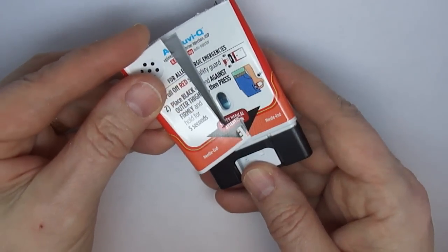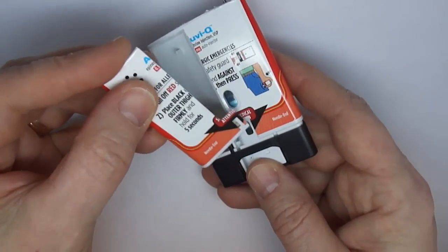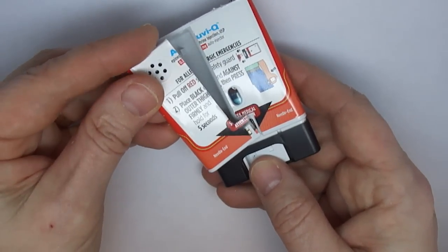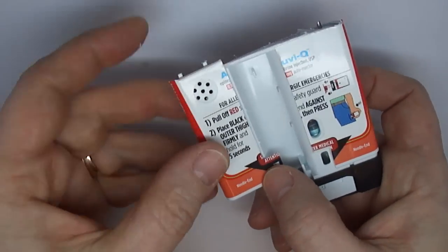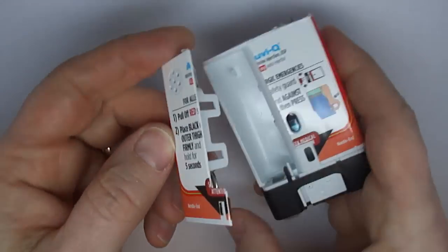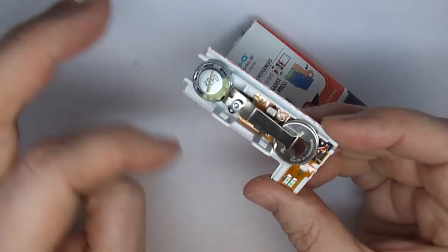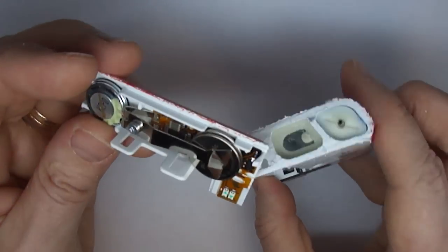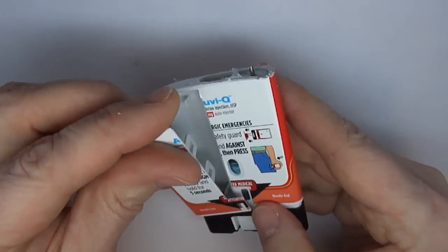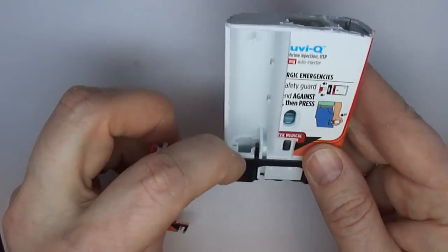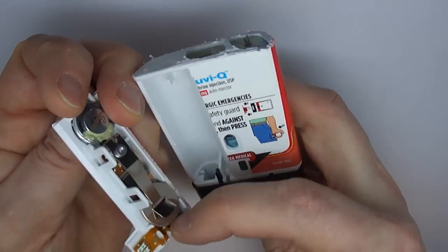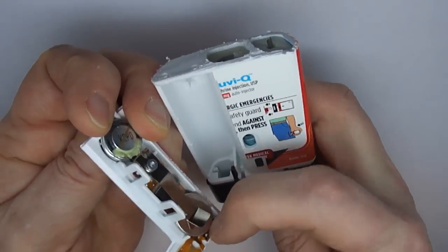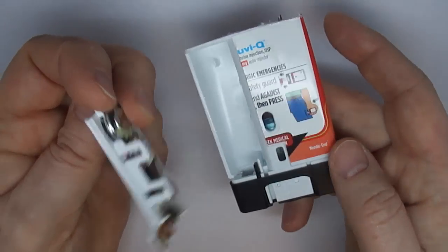And I think that there is a sensor here that can sense what kind of position the needle is in, whether or not the device has been used. Everything else about this section is self-contained, other than this little piece comes up as the device fires, which may also give an indication that the device is being used and trigger the beginning of counting.